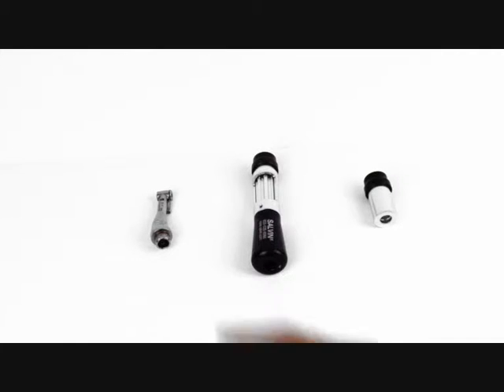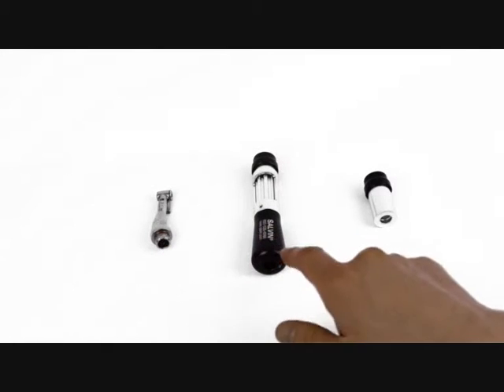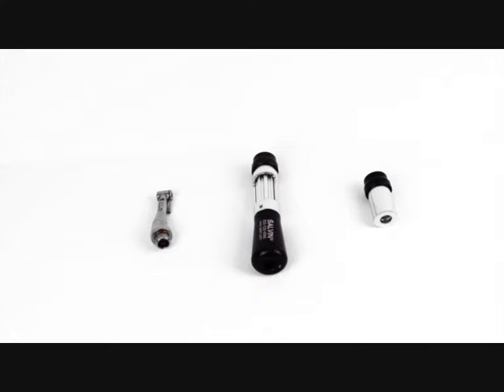It consists of three parts: the head of the handpiece, the body, and this is for lubricating the head of the handpiece.